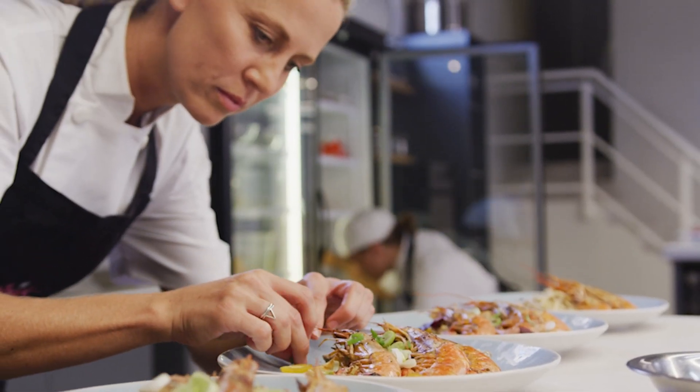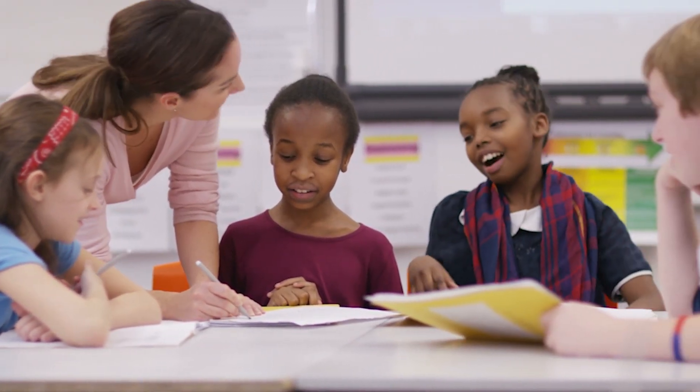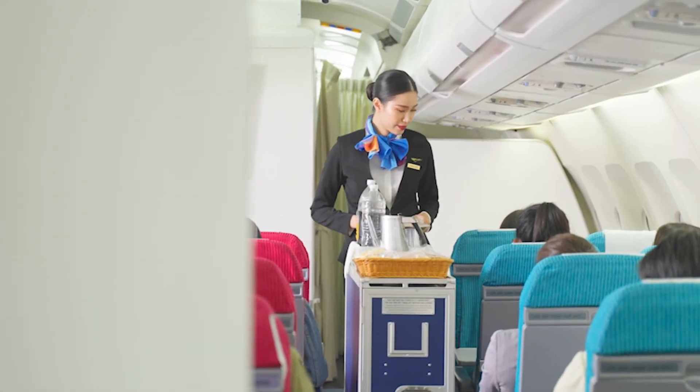BioVigil has been innovating in this space for the last 10 years to save lives, and we are so proud that we have the best outcomes. Those outcomes come at the back of the innovation that we are taking to the marketplace. We are the market leader in healthcare and this is going to solve a key unmet need. However, there are applications of this innovation way beyond healthcare. We can go into categories like food services, education — we can put this device almost anywhere.